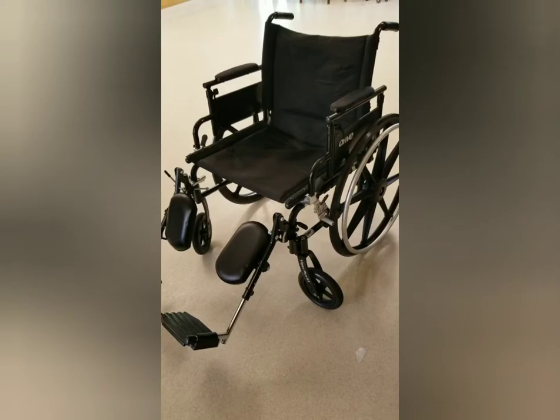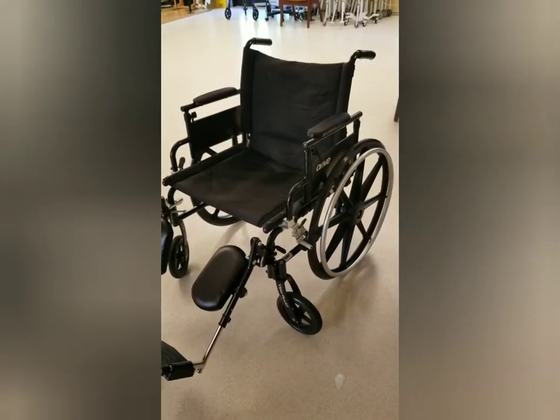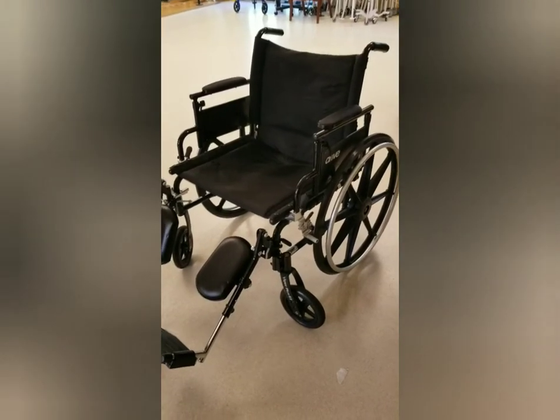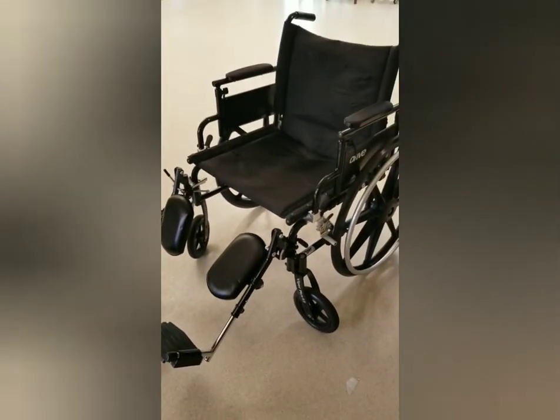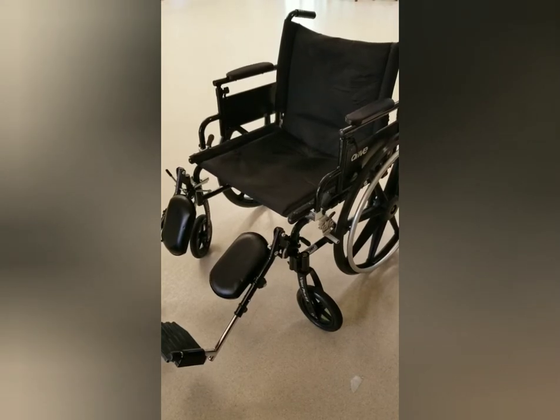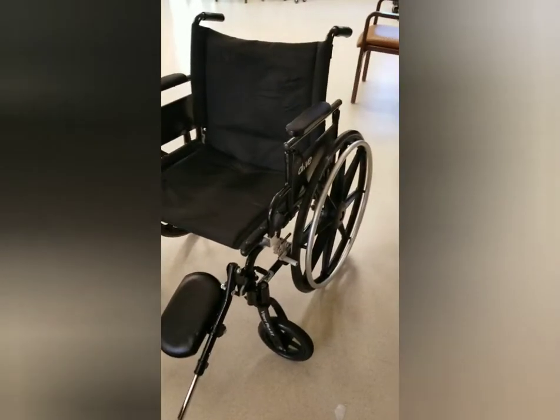There are different types of wheelchairs. This is a standard wheelchair, and I'll show you a little bit about the parts it has and how they work. Most wheelchairs you'll encounter have the same types of parts — they just look a little different. The first thing that's really important is the brake.